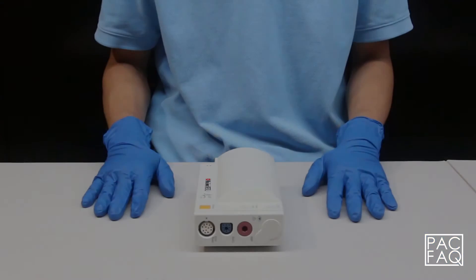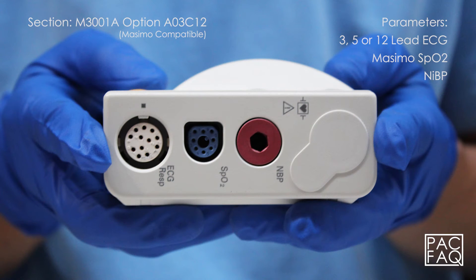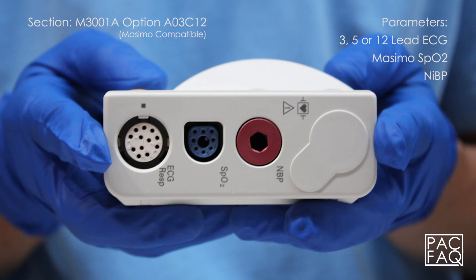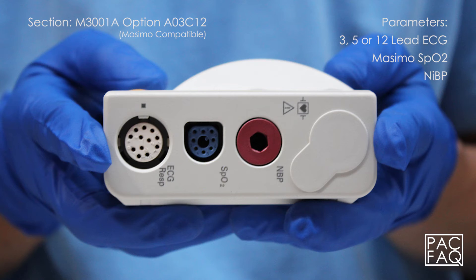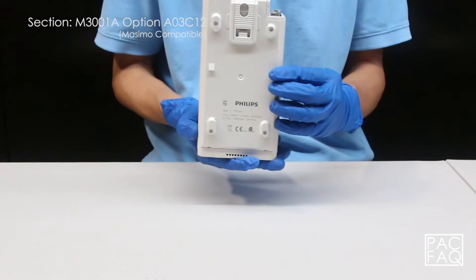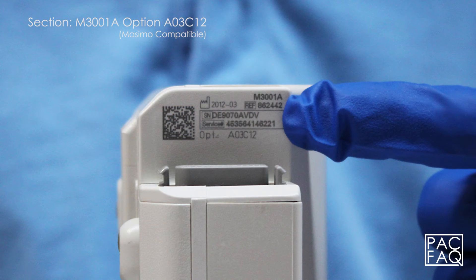Here we have option A03 C12. This unit comes with parameters 3, 5, or 12 lead ECG, Masimo SPO2, and non-invasive blood pressure. The product identification and serial numbers are located on the corner back side of the unit.